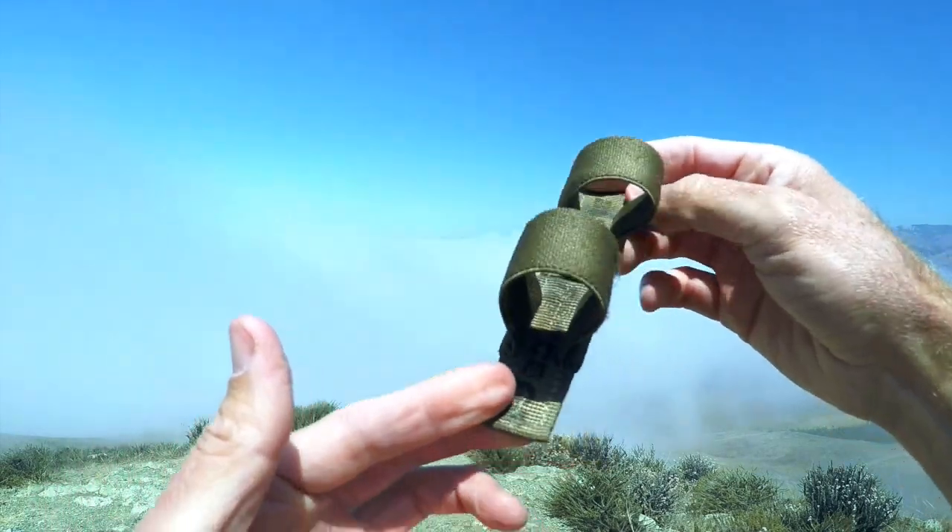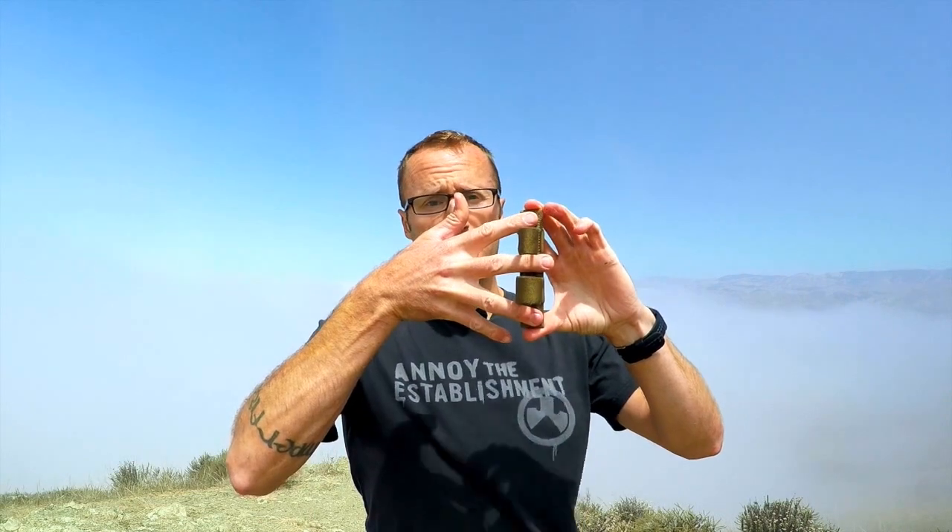As far as mounting goes, this can mount onto a one-by-three MOLLE field, only taking up one column with one, two, three straps going across. To put this in, you basically fold these down flat, slide it up under the MOLLE loops, and once it comes out you pull these out and you have your three straps there with the tourniquet secure.